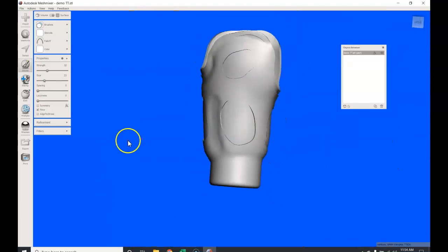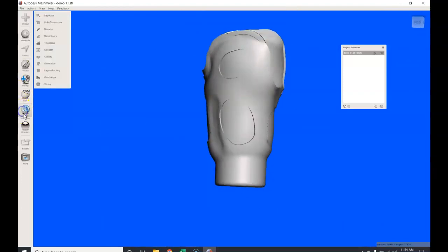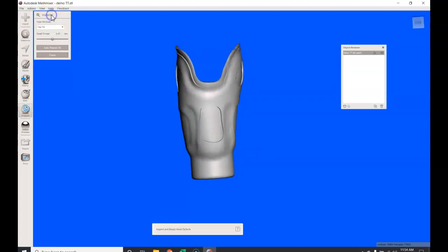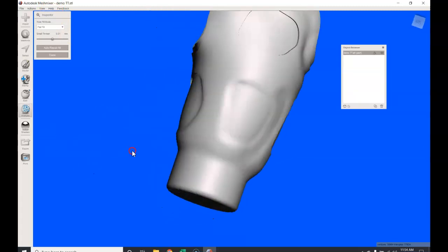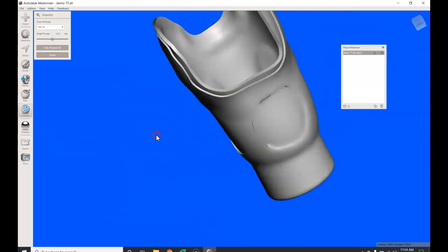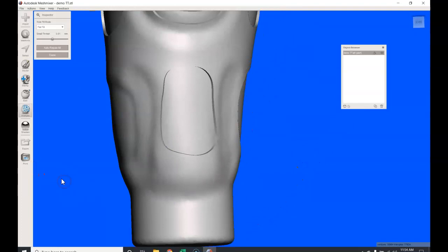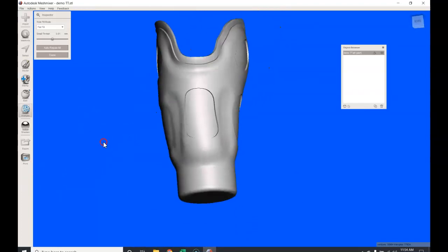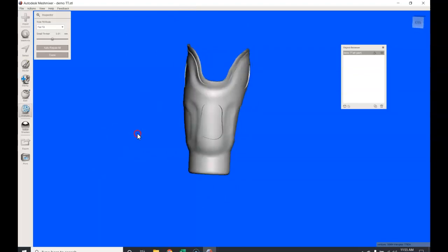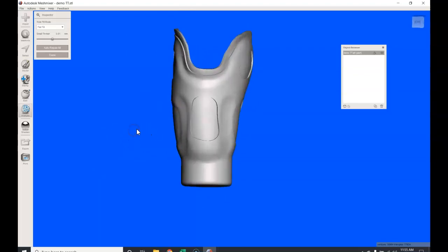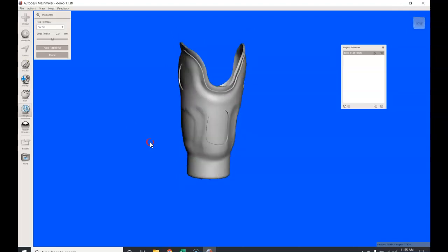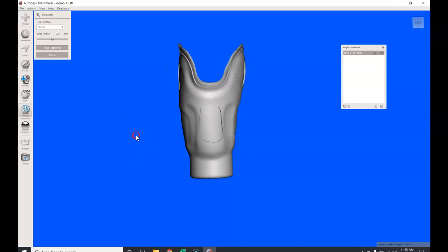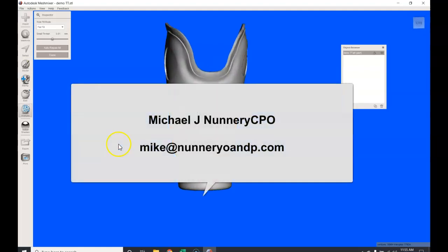So that is your model. And interestingly enough, if I were to run this through the analysis tool, I still will run the inspector; it's going to pick up any flaws. And there are none; there are no mesh defects, there are no disconnections, everything's good. I've printed numerous sockets on my own, hundreds, and I've done about a dozen different prints using an outside service which has gone through with no flaws. So hopefully this will give you an idea on how to run this workflow.